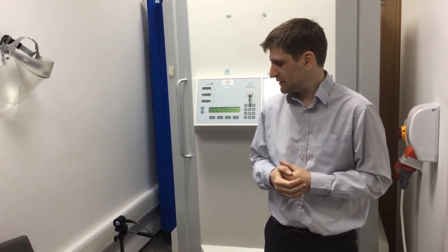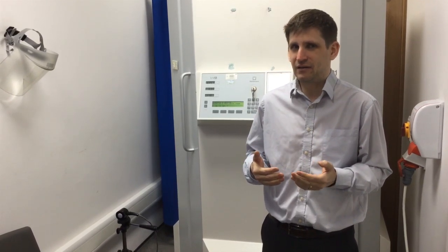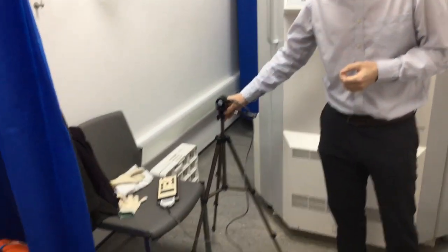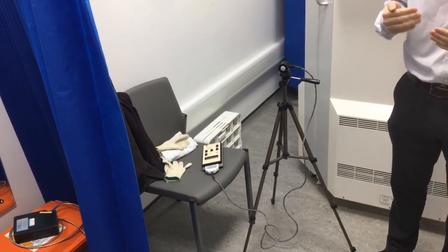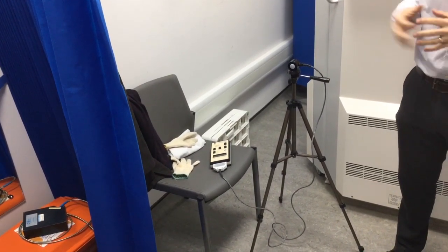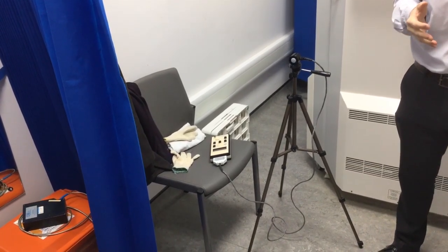Moving on — we've covered the direct method and we're now going to talk about the indirect method. The advantage of the indirect method is that you can get rid of inconsistencies caused by having different people going into the cabin or different PPE on different occasions, so we can control the situation better using a tripod. The disadvantage is that we don't have the same shadow factor, so the cabin isn't seeing what the patient actually sees. The main advantage of the indirect method is from a safety point of view — there's no risk from anything going inside the cabin.